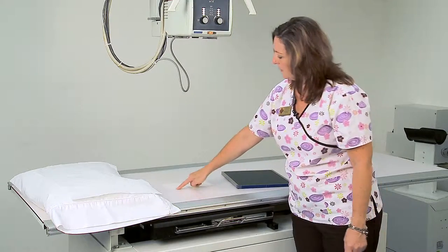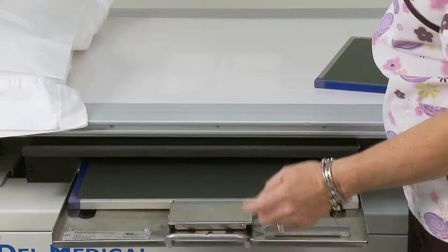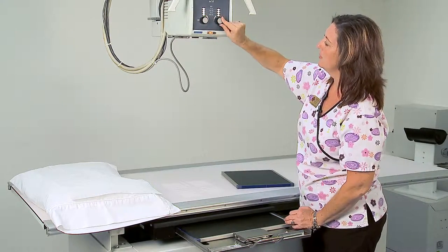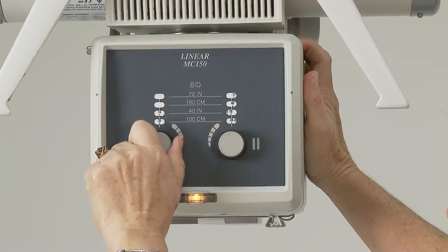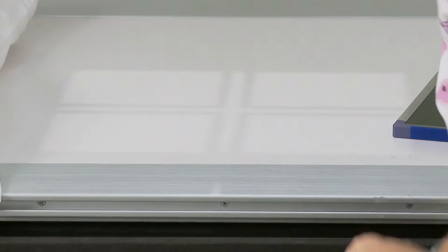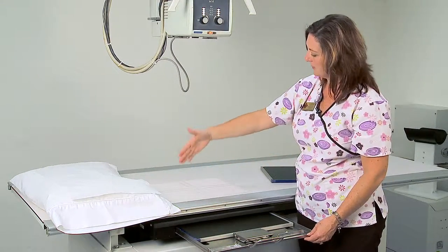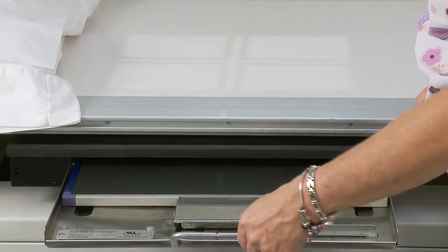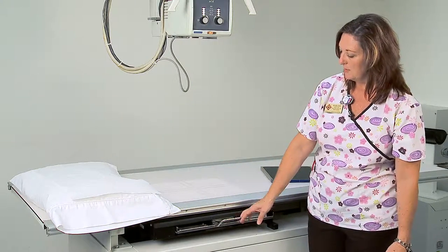You can see where the light field comes all the way out and you want to center to the appropriate size image receptor. This is a significantly smaller light field than what we have in our bucky tray — this is a 14 by 17 inch placed in lengthwise. So we will move the collimator knobs to open the light field to a 14 by 17 inch distance, turning it to 14 by 17. Now our light field is 14 inches wide by 17 inches long, matching the cassette in the bucky tray and giving us maximum usage of the light field.